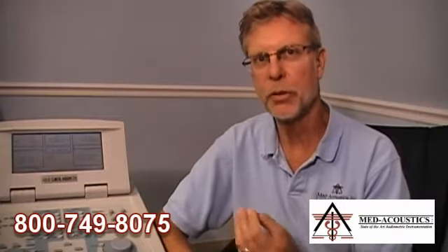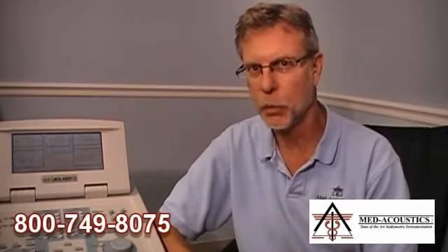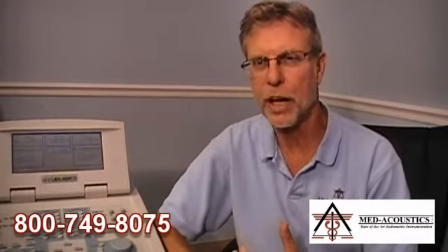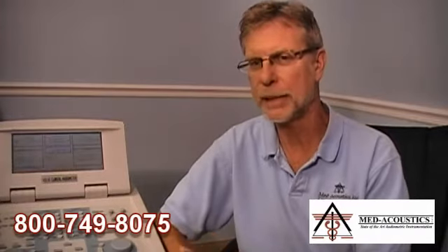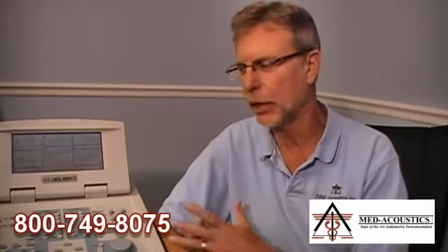What we'd like to explain now is something called a listening check on an audiometer. This is a very valuable thing that most audiometer users don't do, but if they did this regularly it would take only one or two minutes and would save them possibly hours of regret later. Many times we find a problem that could have been detected during a listening check that goes unnoticed while testing patients — and most of these problems are minor things that can be taken care of on site without a service call.